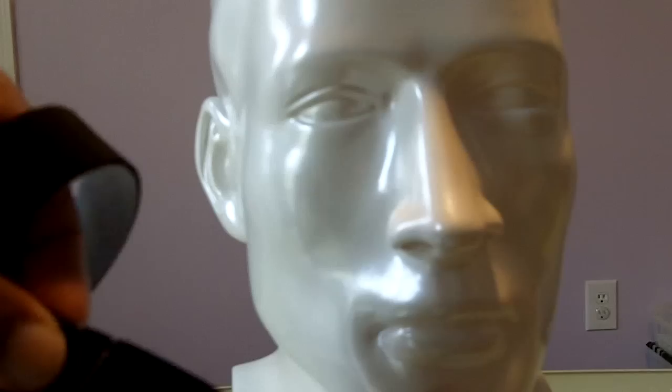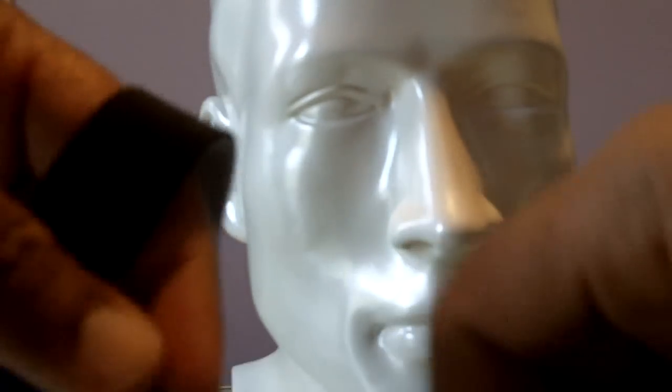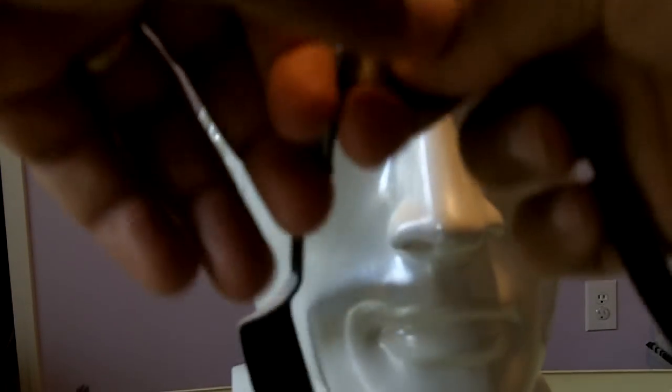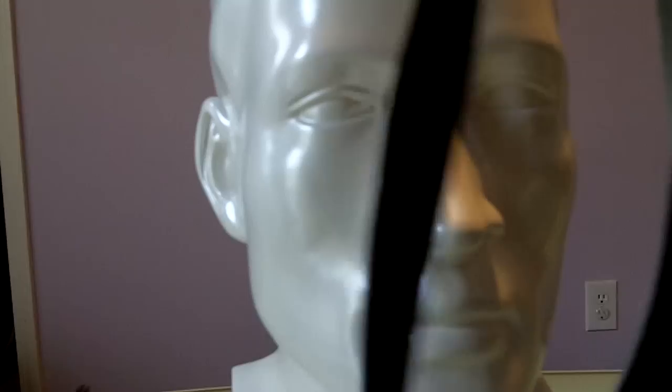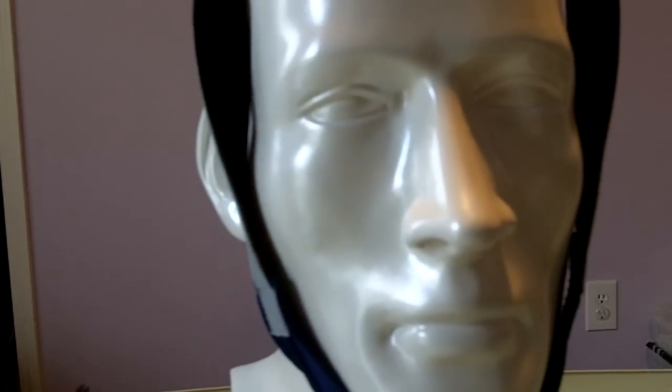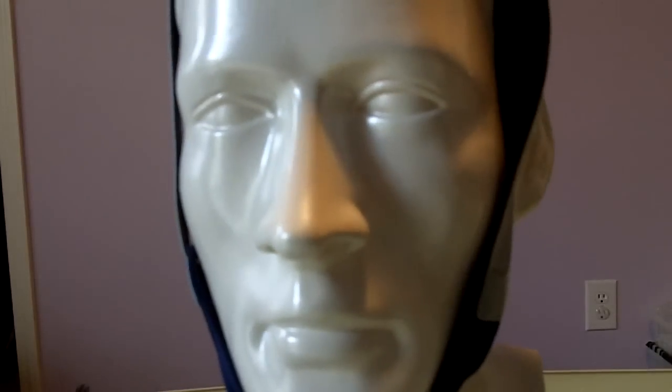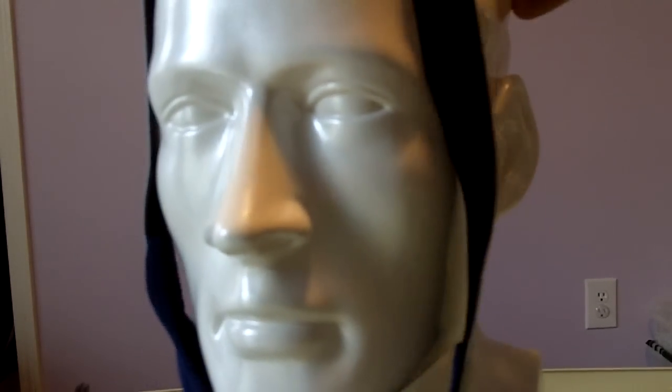Now, do you see this letter V? This should sit slightly here. With all these chin straps, I want to put this on here and show you something.